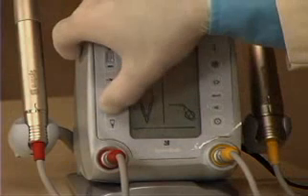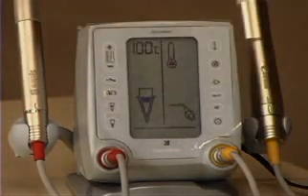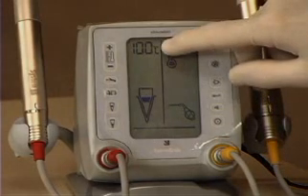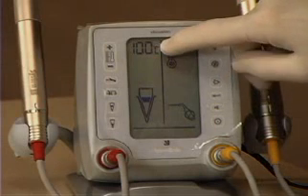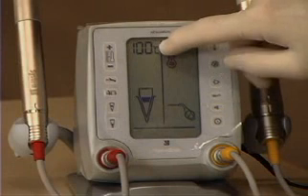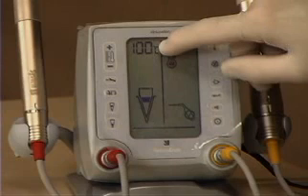The next button down is the low-temperature down pack. This can also be used when a one-cone backfill technique is planned. It has a default setting of 100 degrees C. If we have a short canal, or if we want to make sure we down pack and do not stick the gutta percha cone to the plugger, we do it at this lower temperature.